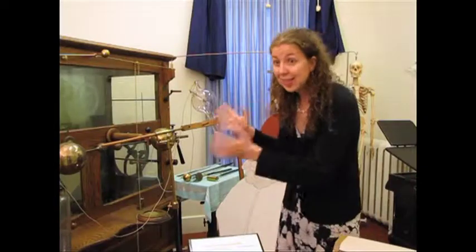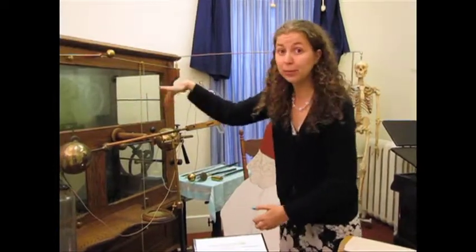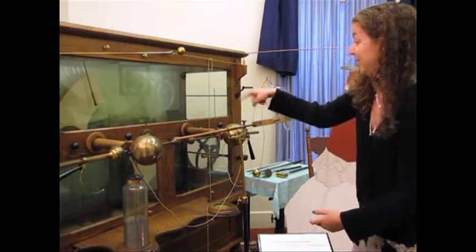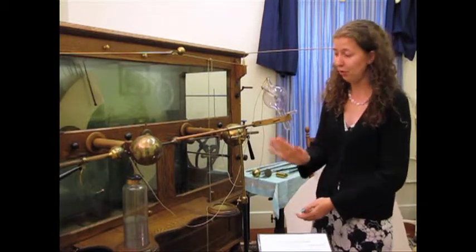And then you'd actually see the electricity going between these two brass balls. You can imagine how scared people would be in the Victorian period to see a bolt of lightning. They didn't understand electricity at all.